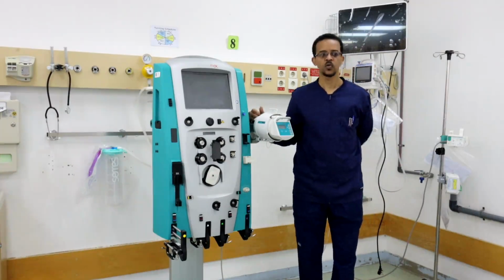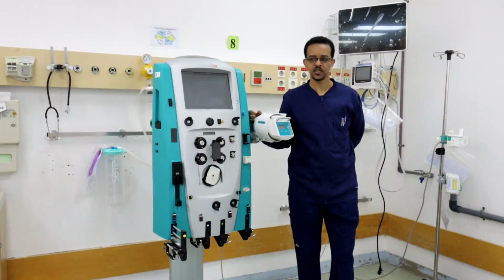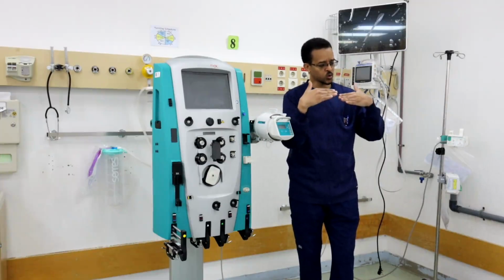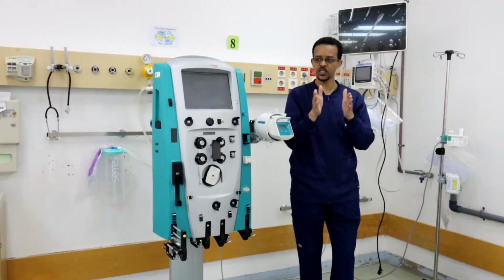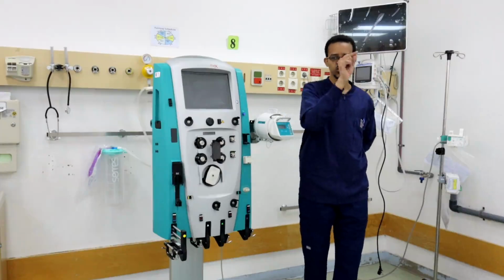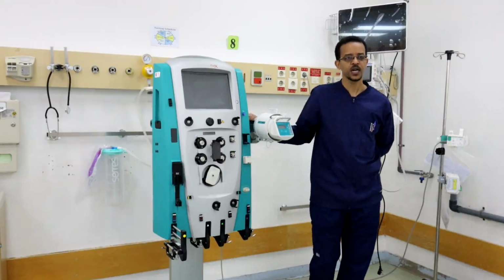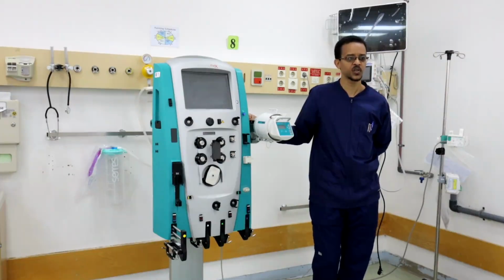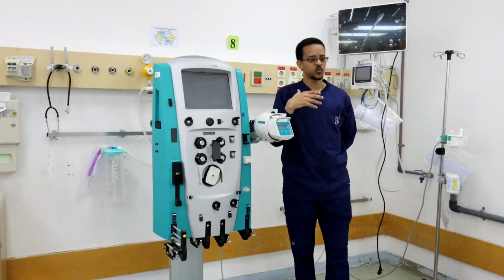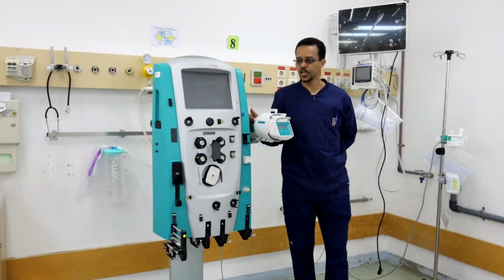This is because of the concentration gradient. So if we want to excrete small molecules, we need to add solution to the filter to make this concentration gradient and to allow solutes to diffuse out of the blood. This process is called dialysis or hemodialysis, in which we excrete the small molecules.